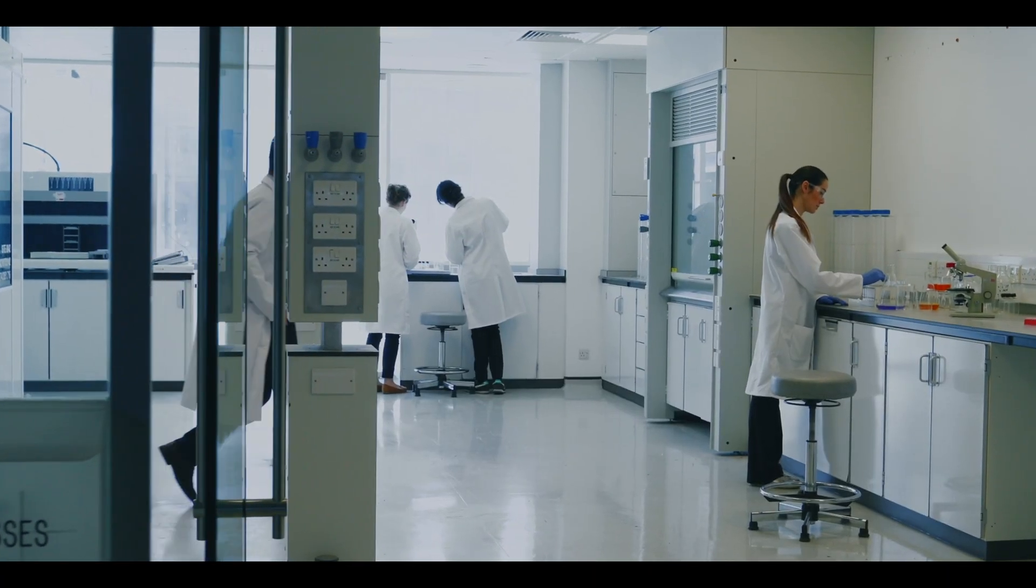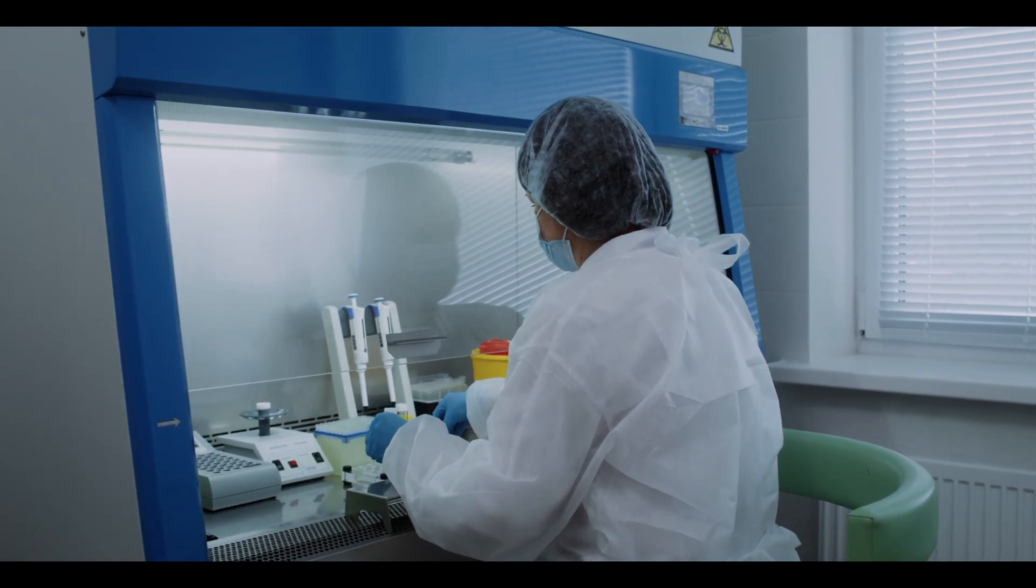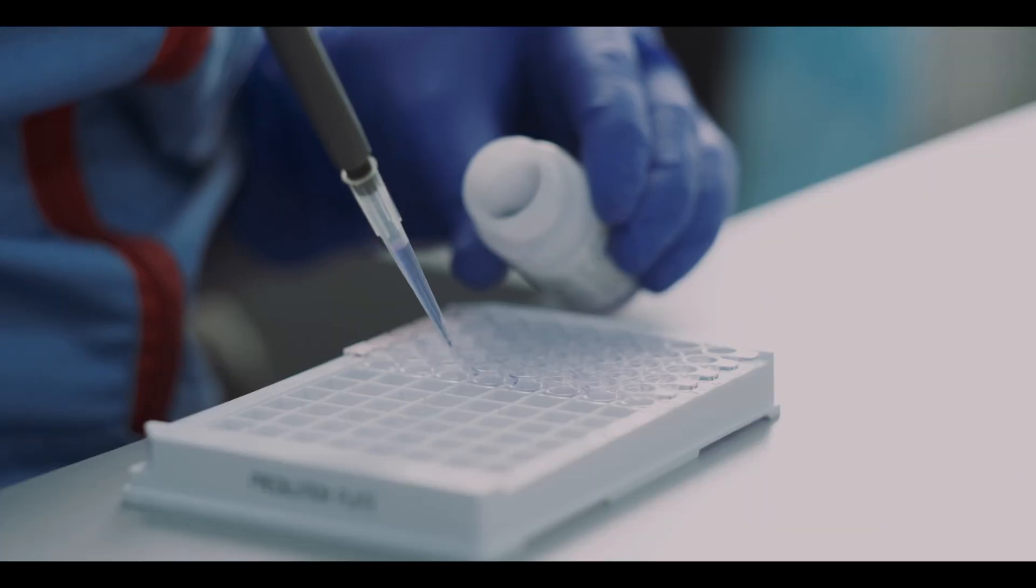In today's world, where clinical laboratory needs are constantly evolving, the demand for advanced systems that facilitate speedy and versatile measurement workflows is increasing.